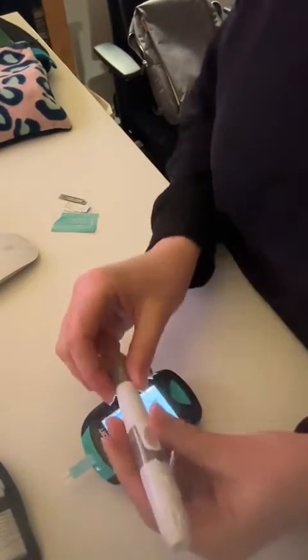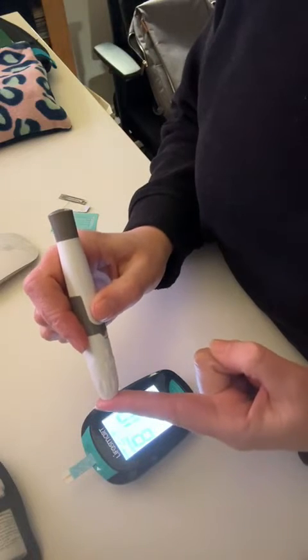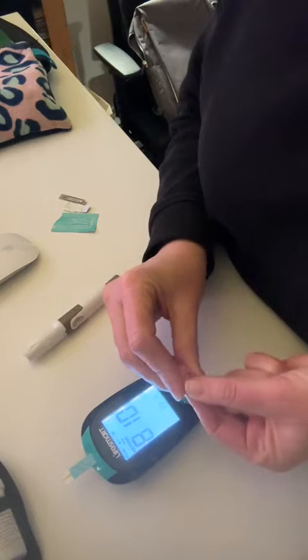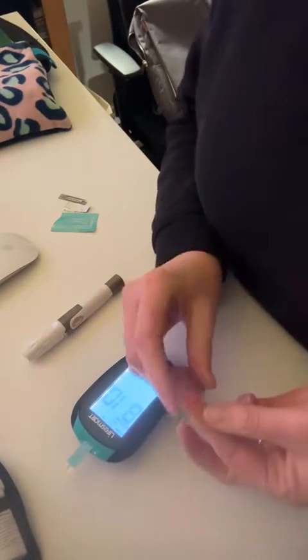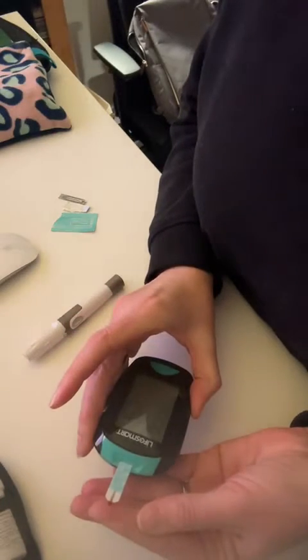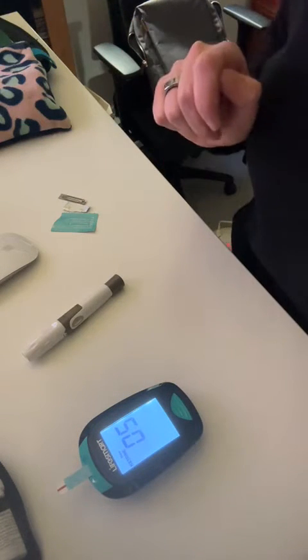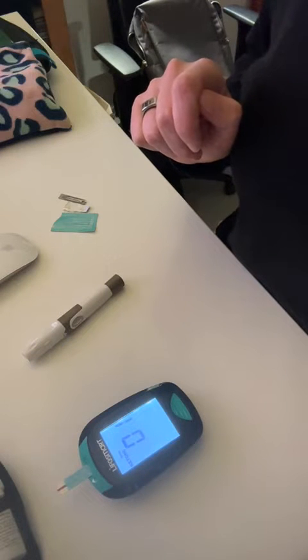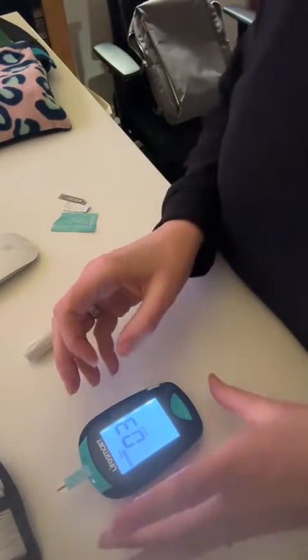Then we go through the little pores, get into the finger, get some blood — sometimes it can be tricky, make sure there's enough otherwise it just doesn't drop down. It's always a bit of a game when you start doing this. Not expecting it to be too high in the ketone levels.